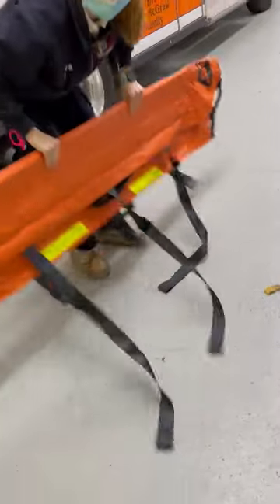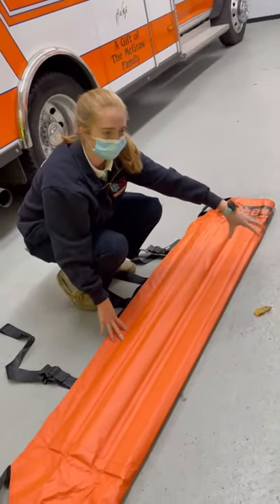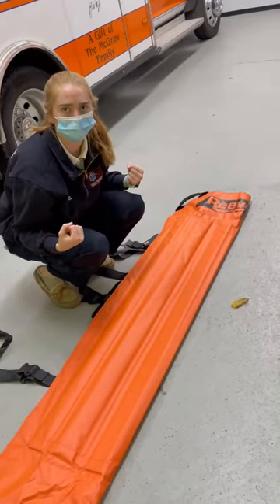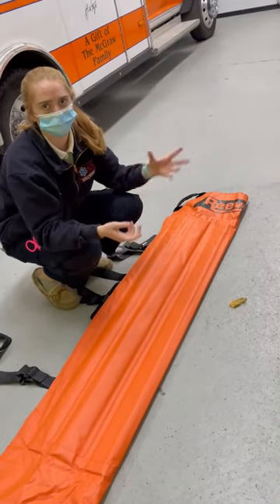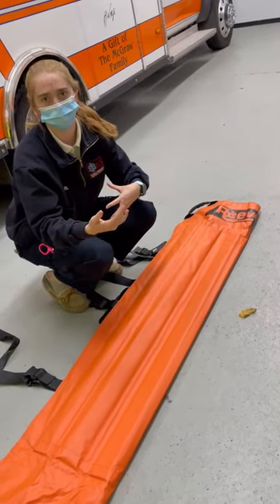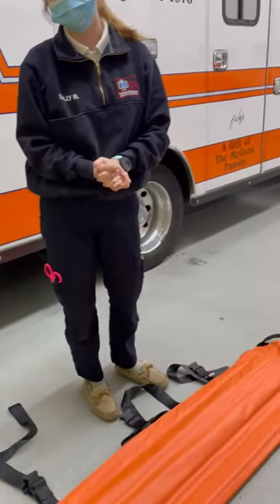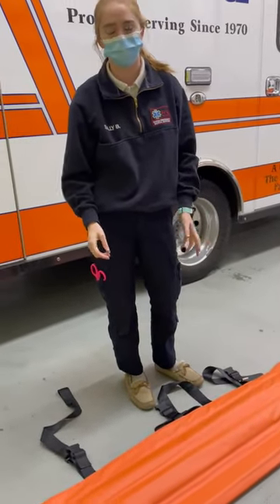The purpose is: you're going to have a patient lie there, log roll this side or vice versa — basically one side is going to be log rolled and the other you just slide under as best you can. One thing to make sure is that you have a blanket with this at all times — it's much more comfortable and it helps with moving.